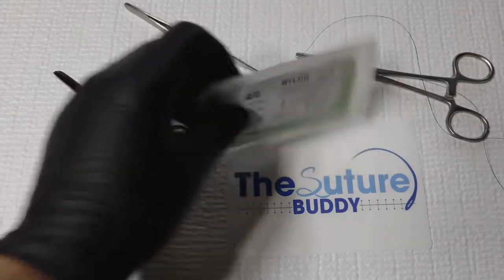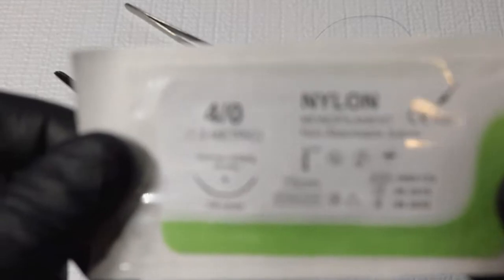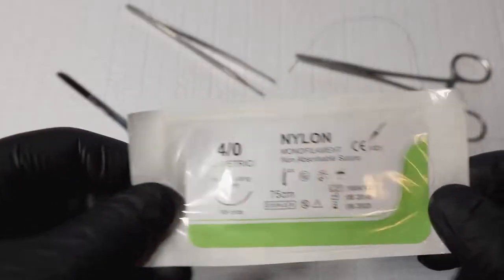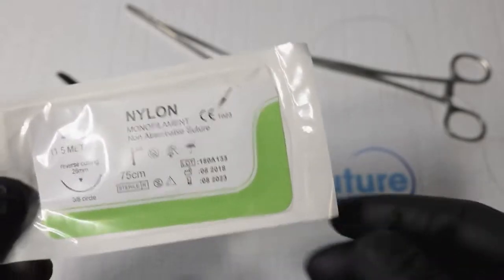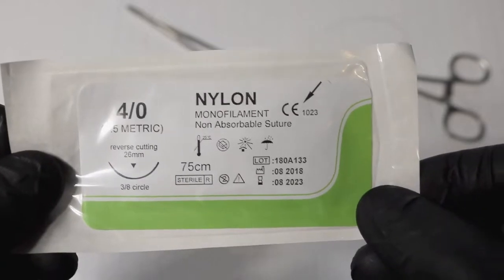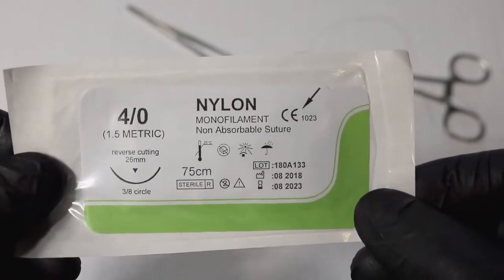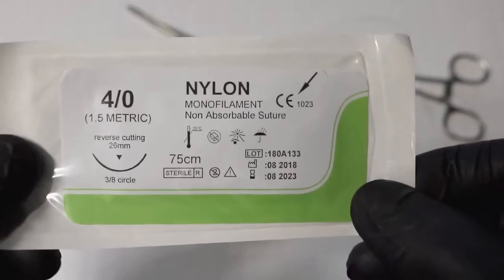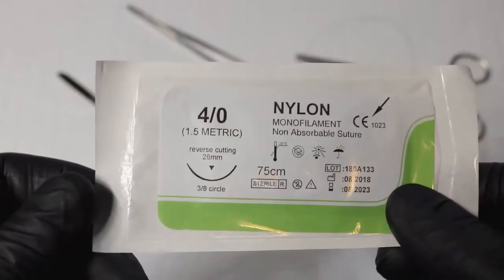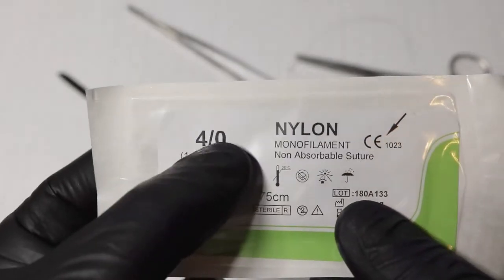Let's take a look at the actual suture material and thread. Let's start by talking about suture sizes. Suture sizing is just like the sizing of IVs and injection needles — the smaller the suture, the larger the number. The smallest sutures are like 10-0, and you'll pretty much never use those unless you're doing plastic surgery.